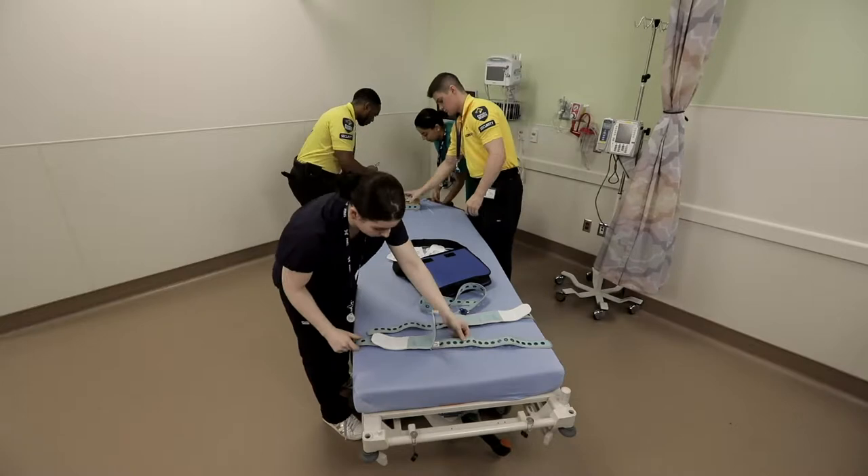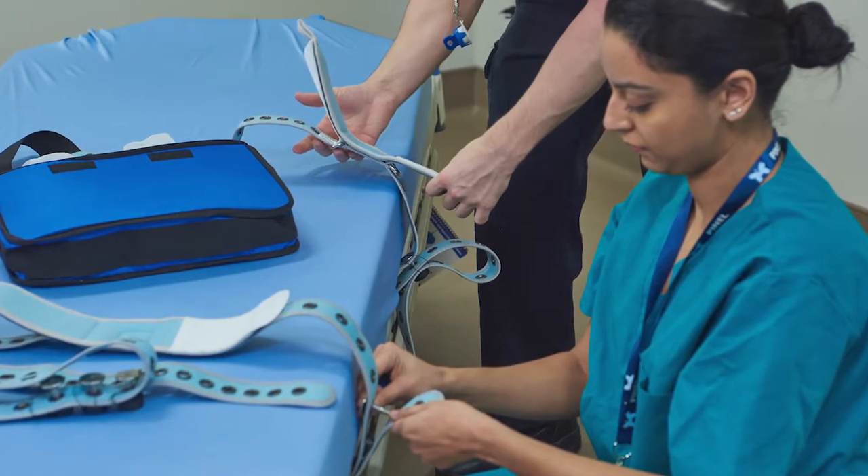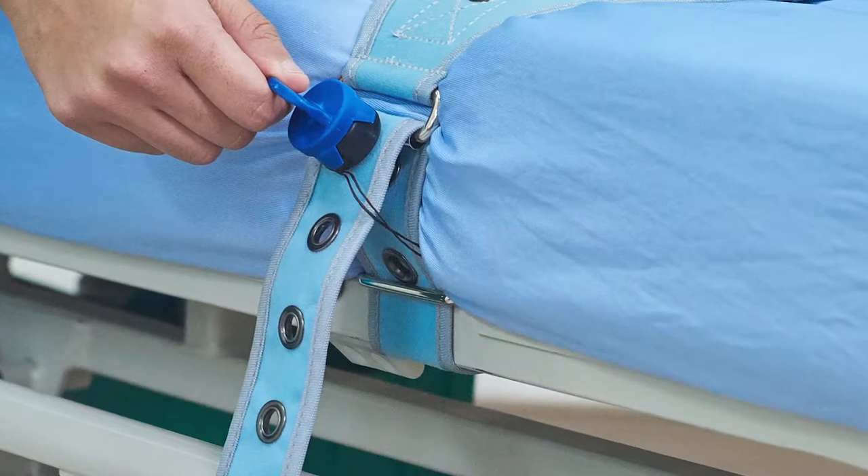In order to reduce patient vulnerability, the ankle cuffs should be secured close together. Tighten the long strap and insert the pin and lock with the button. Ensure that the button is facing outward to allow easy opening.